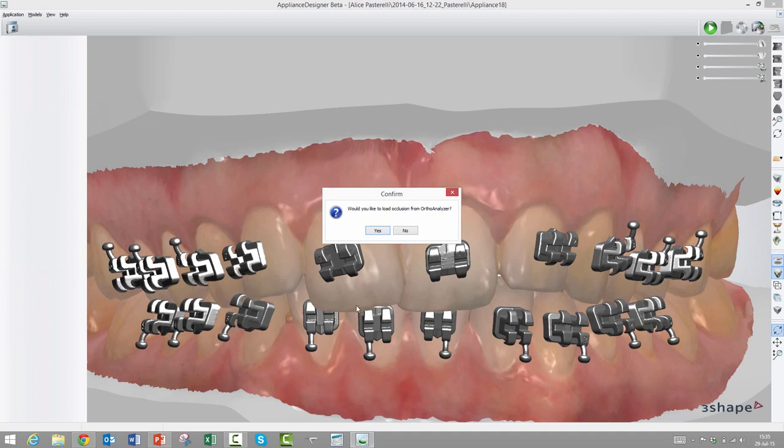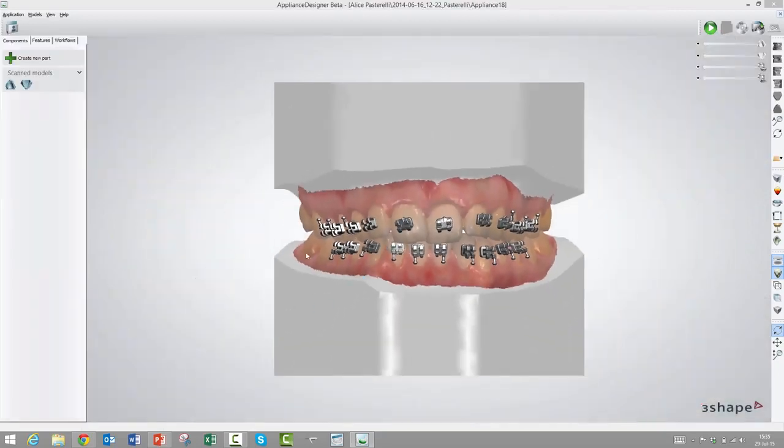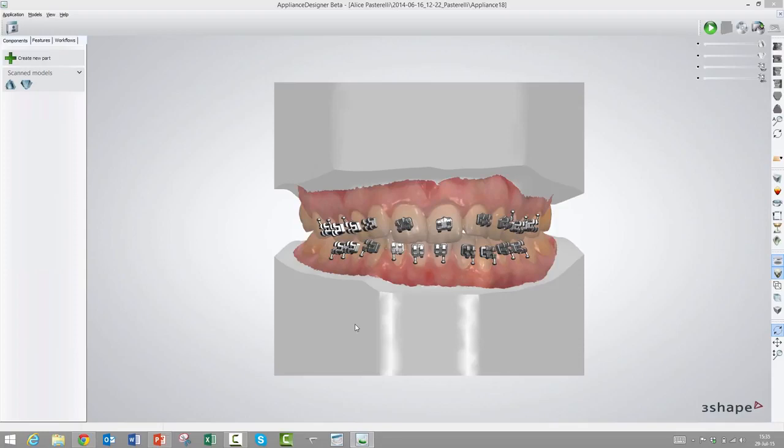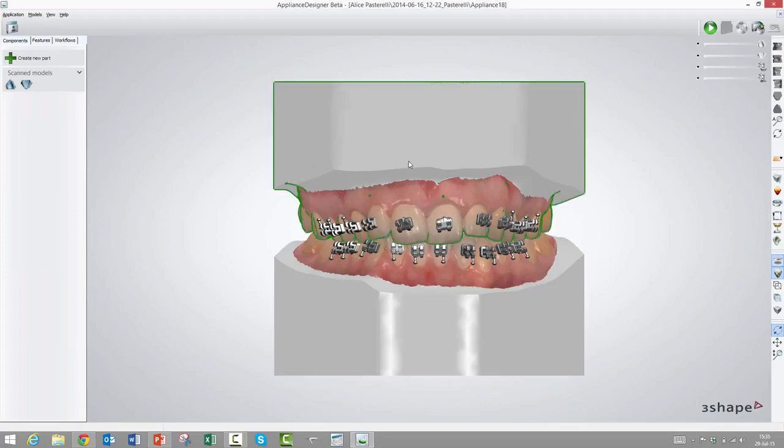It will ask us if we will load the occlusion from Ortho Analyzer and we will do that. This is the case where some of the brackets on the mandibula are colliding with the maxillary, and maybe we've saved another occlusion to circumvent that. Now we could load that occlusion. I saw that quickly there. It opened a little so there's no intersection. So now we need to make some transfer media, and we will start with the basic stuff as is used today in indirect bonding, and that is where we generate a model where you vacuum compress on top of it.